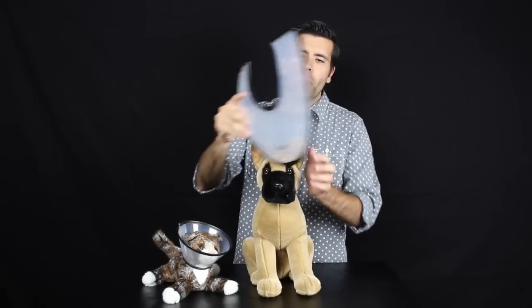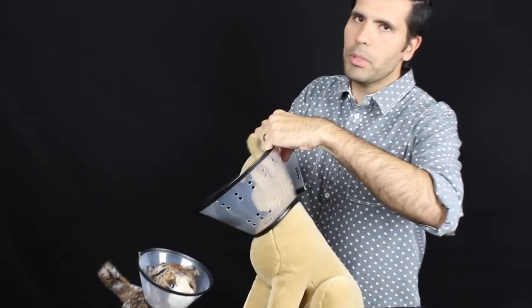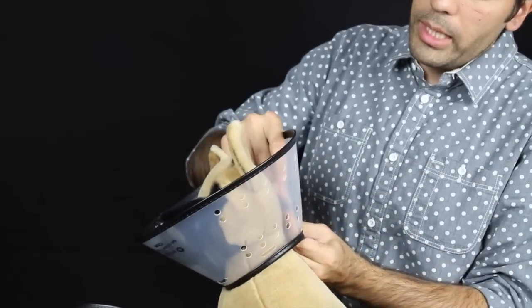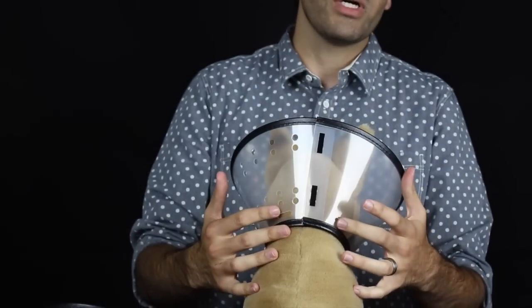Let's show you how we put it on. I'm using my little pal Rocky here. We're going to go right underneath the muzzle and it's just a black snap. We're going to snap into these holes, easy as could be. Boom. Holds really really well.